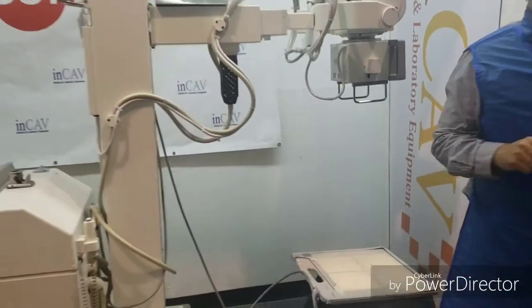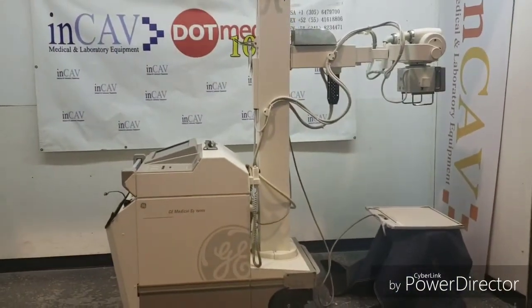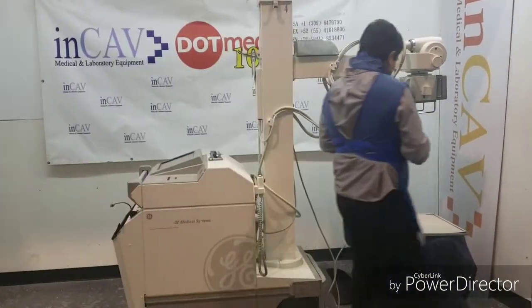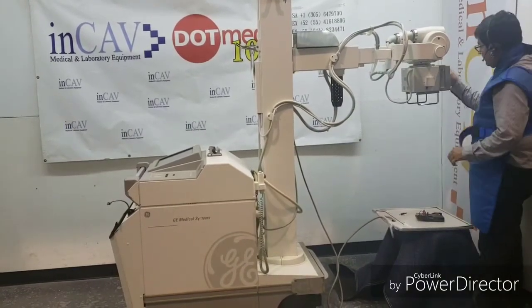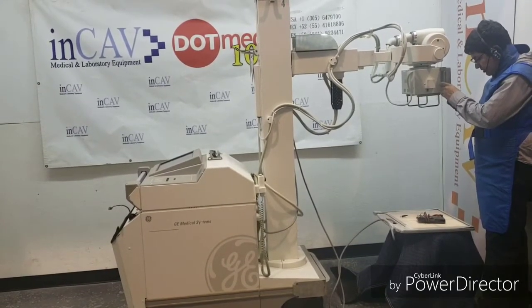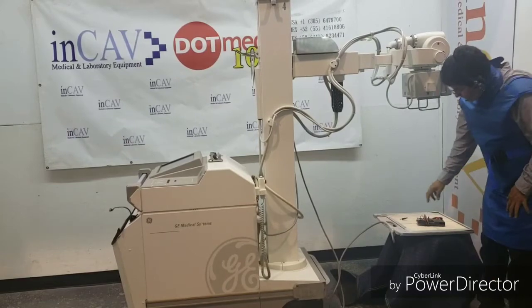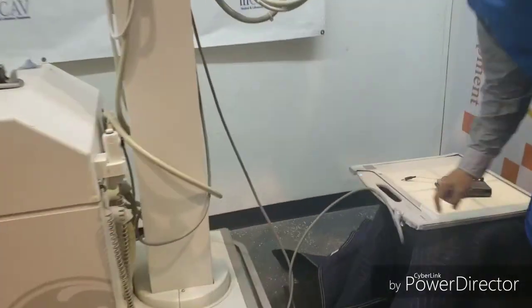Let's take a sample — let's do a test now. You'll notice that the detector is on because the blue power light is on. This is because it's connecting with the DR system.